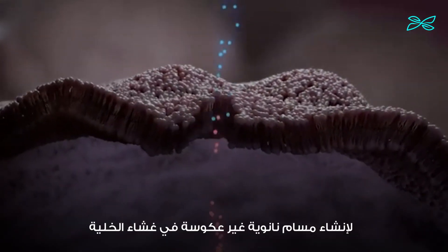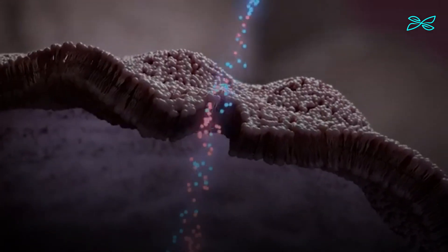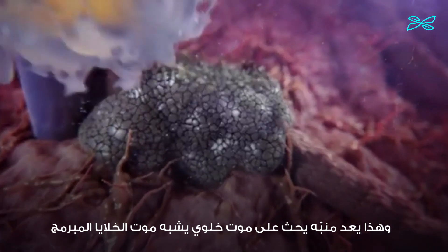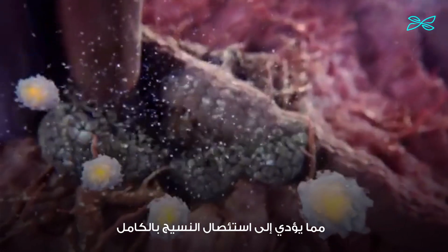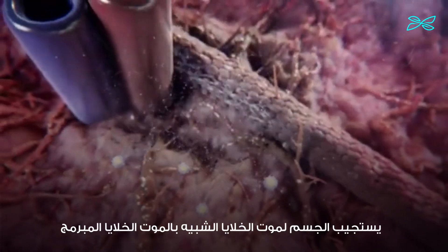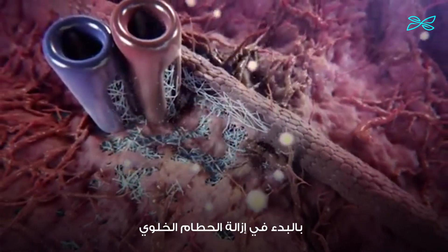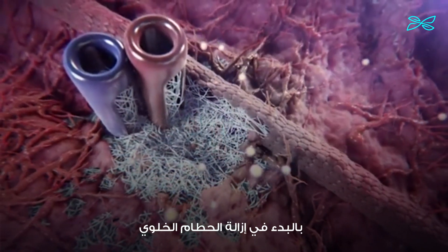The pulses create irreversible nanopores within the cell membrane. This stimulus induces an apoptotic-like cellular death, resulting in the complete ablation of tissue within the electrode configuration. The body responds to the apoptotic-like cell death by initiating the removal of cellular debris.